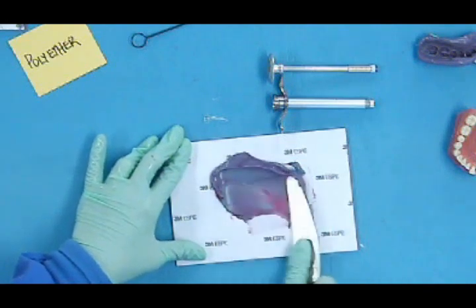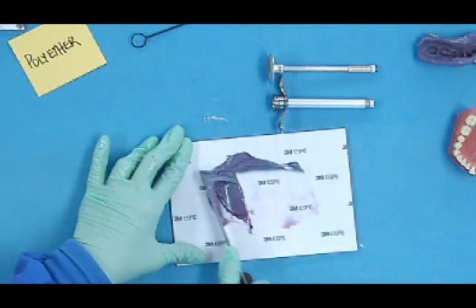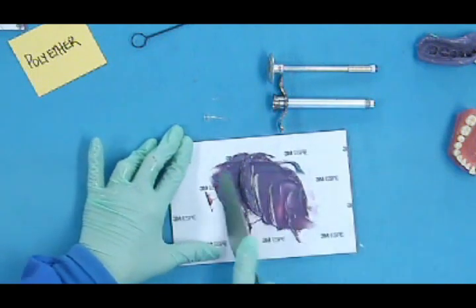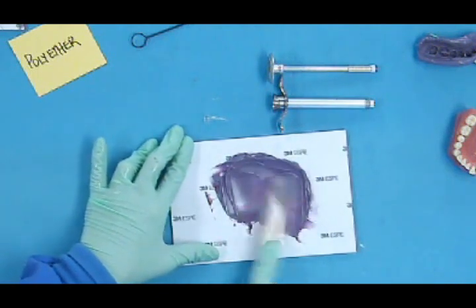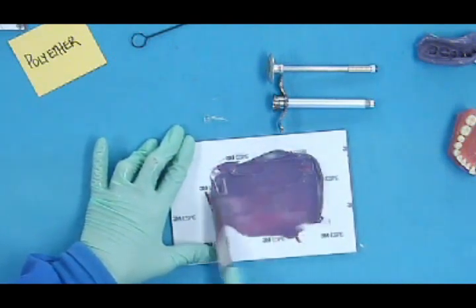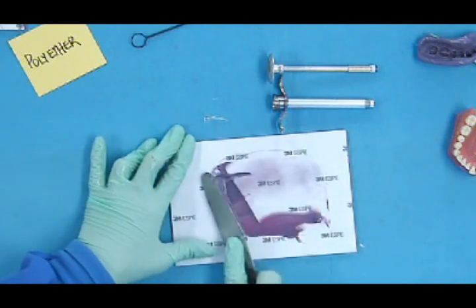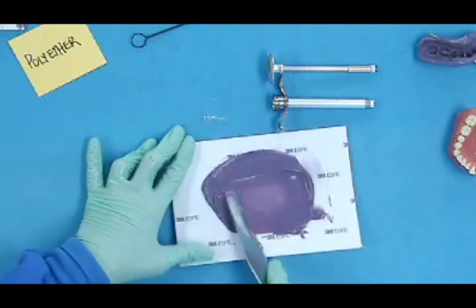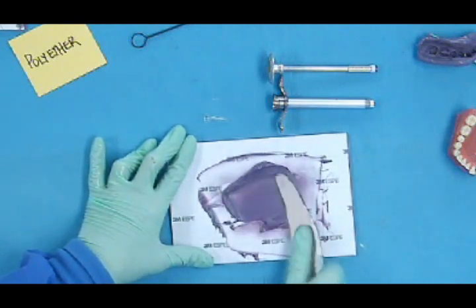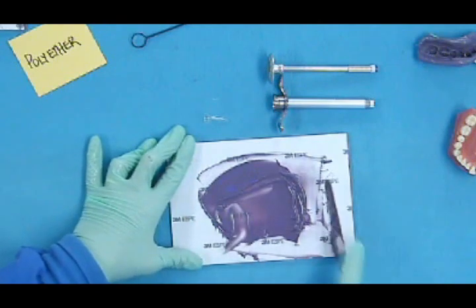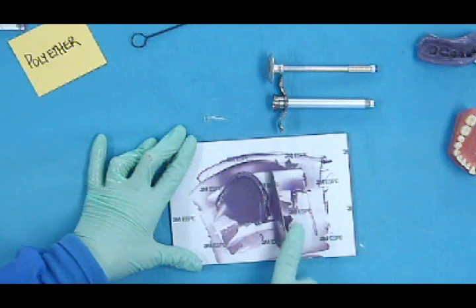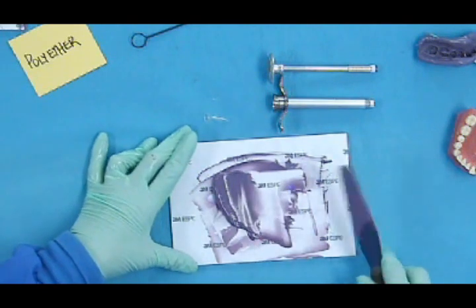One side of the spatula. My wrist is moving back and forth, back and forth. So I get it up in the pile again.